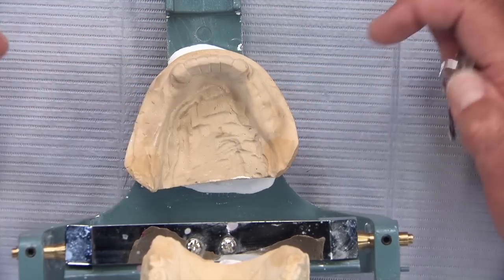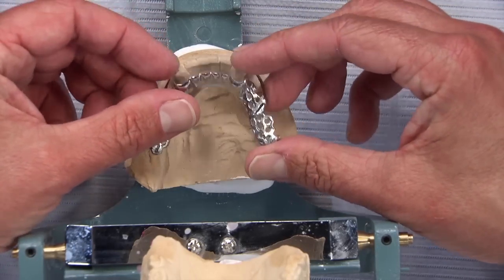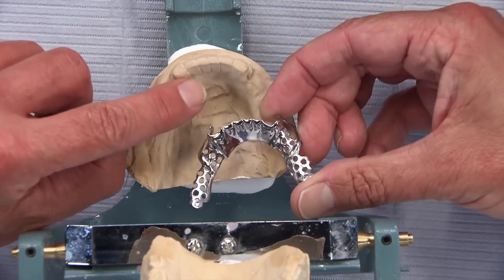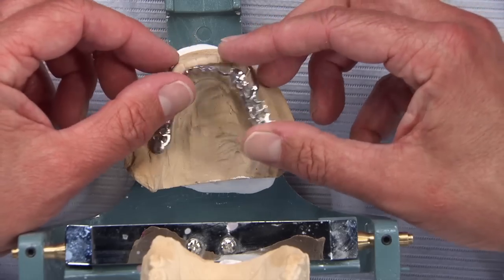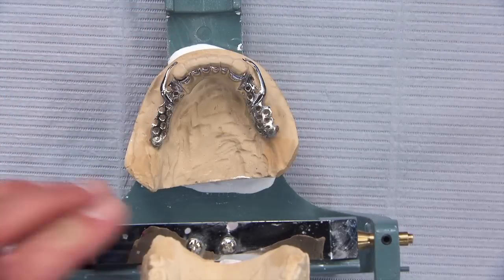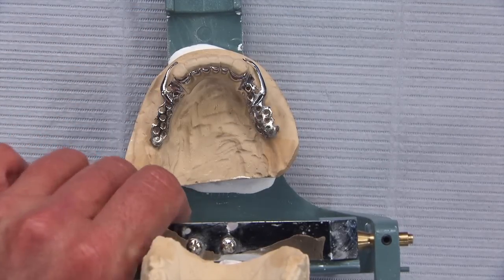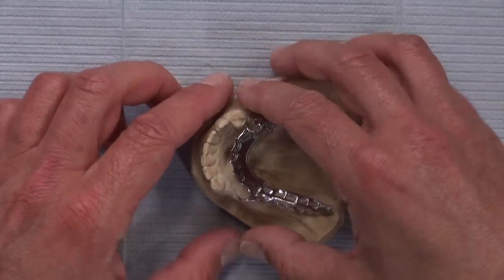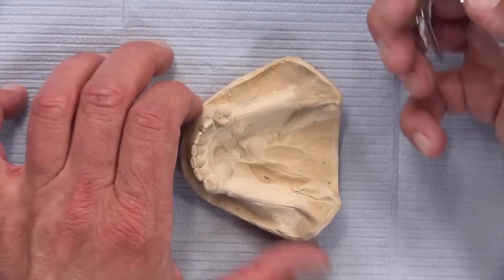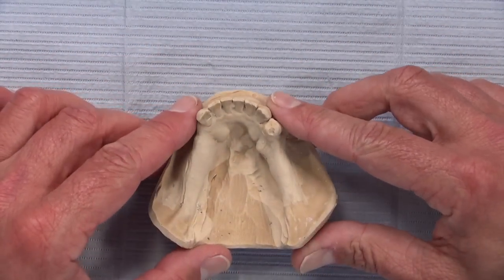The right way to do it would have been to include a metal rest prep in the bridge design on the lingual — somewhere the patient would never see it. I'm pretty sure their tongue would get used to it even if a partial was never done. Now this next case has a lot going on — it's another slippery slope case.